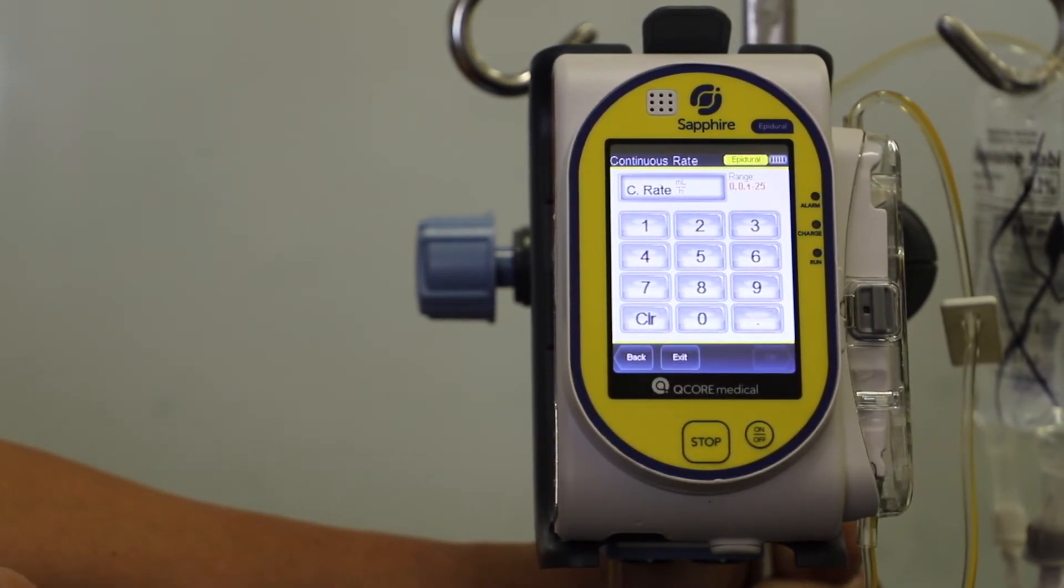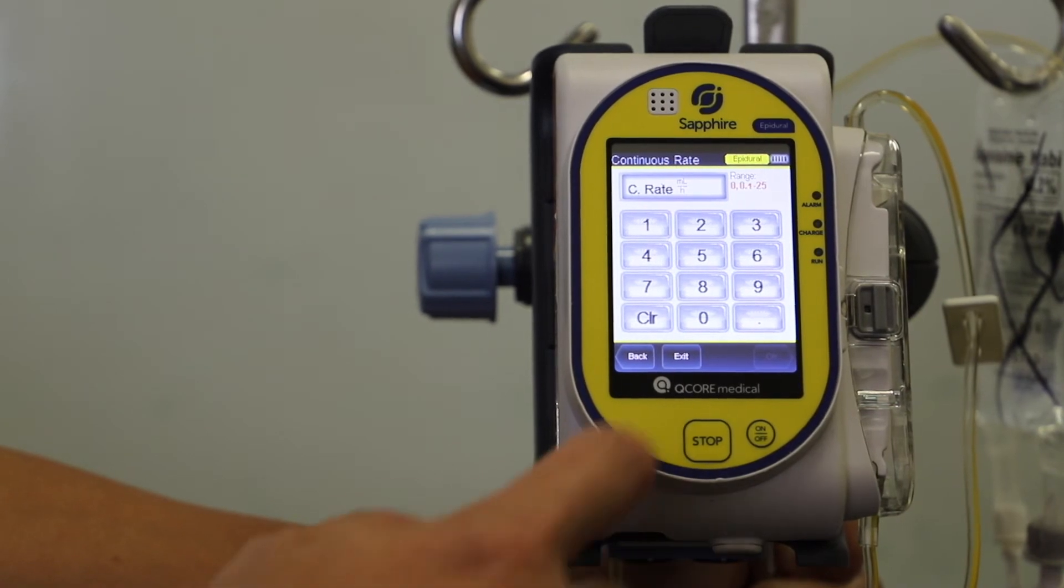Your continuous rate, in this case, refer to your prescription, which was eight mils an hour.